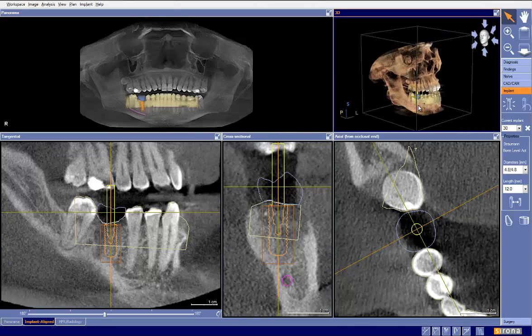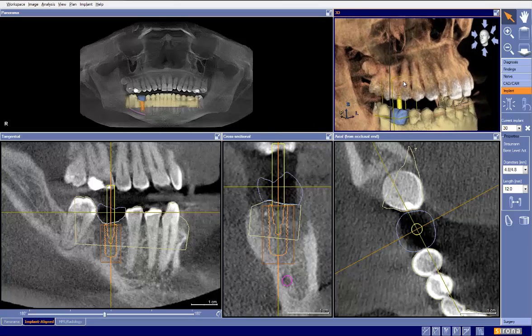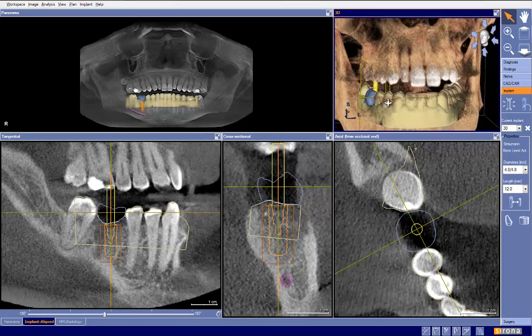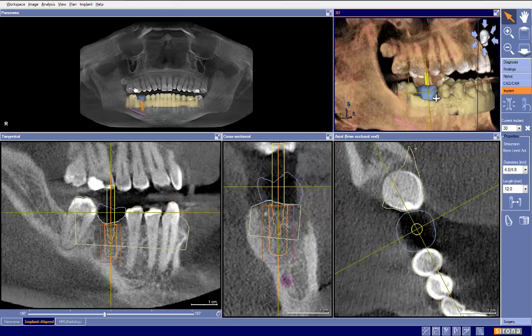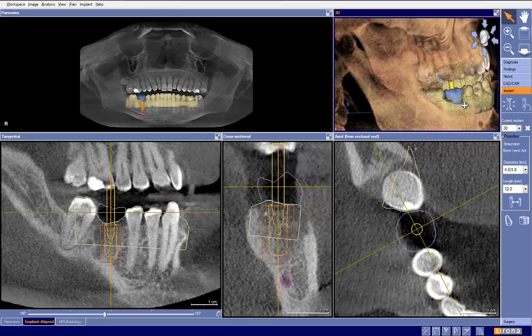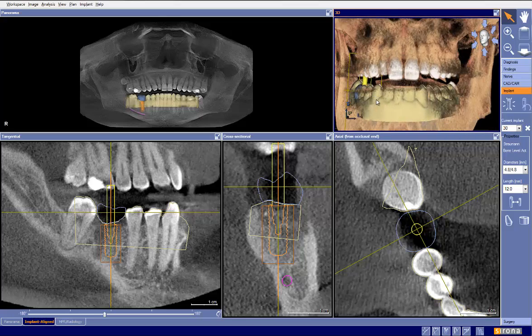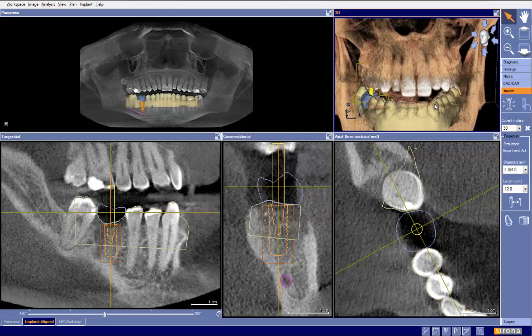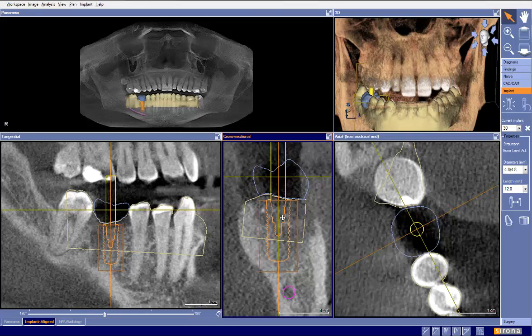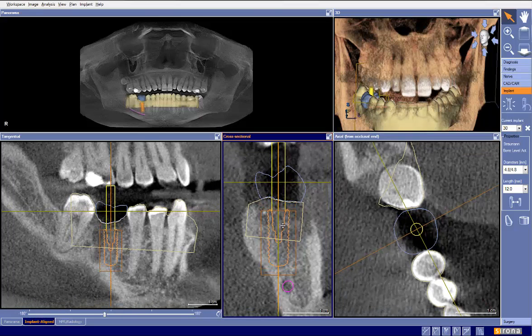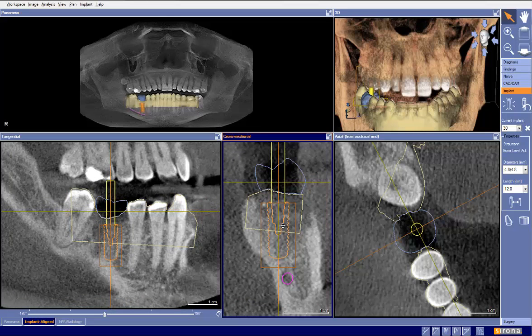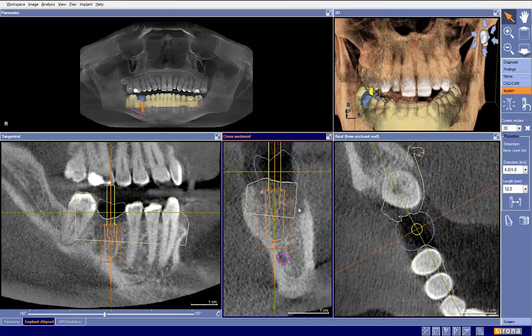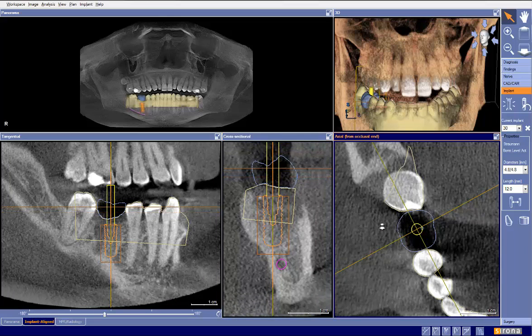One other thing I'd like to take a look at is right here — we have captured enough of the CEREC data and the tissue data. It's a great case for an OptiGuide. The integration is well done. I just think that our plan right here needs to probably drop to about right there. Once we do that, we bring in this lingual concavity, which is going to bring me to our next point.